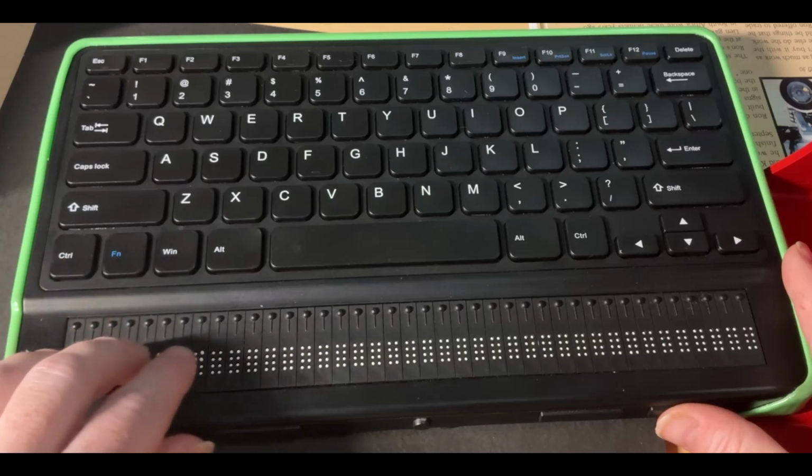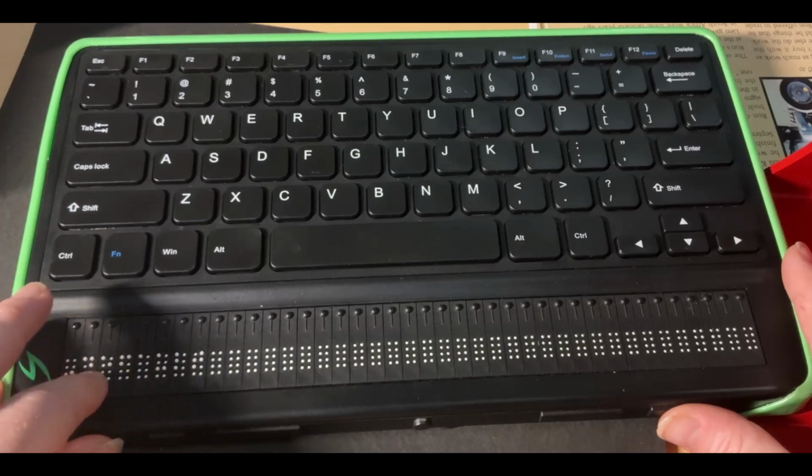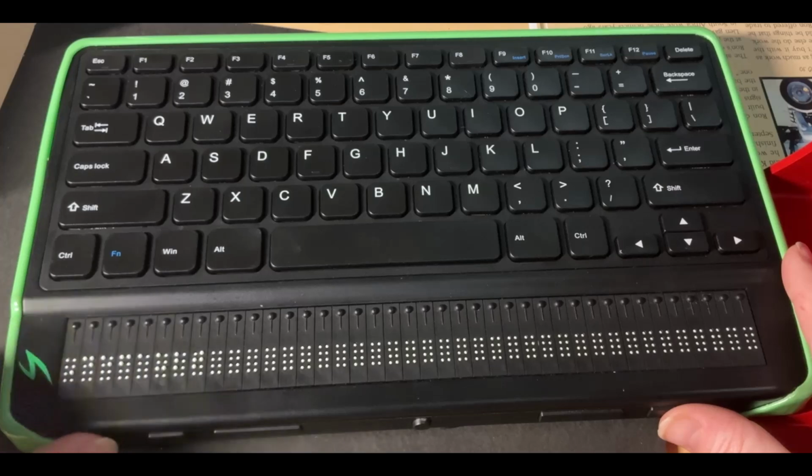And then I'm presented with the word default again, which is not underlined, telling me that the profile exists, but it's not active.